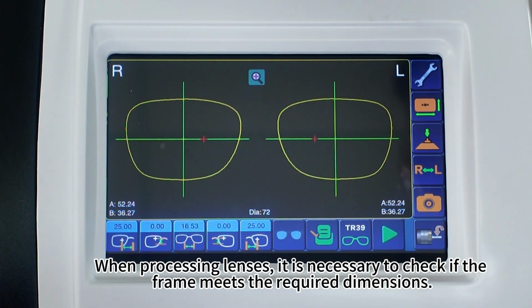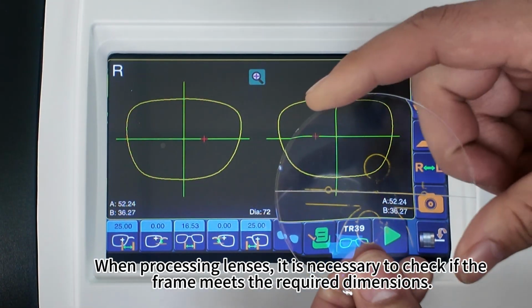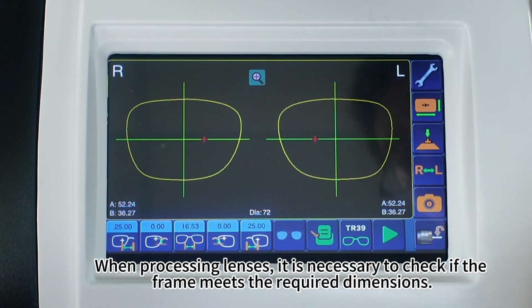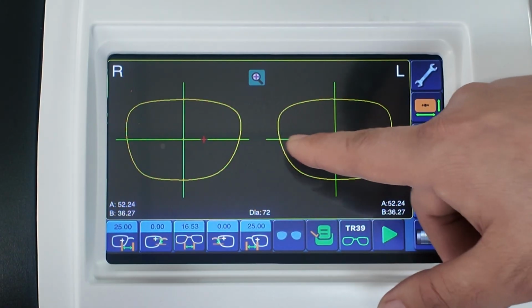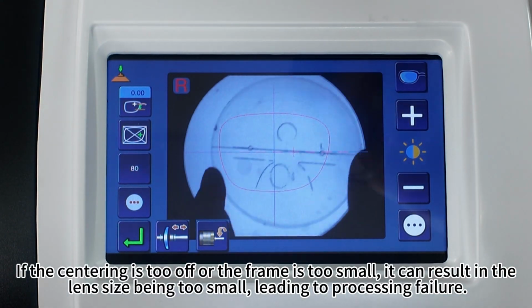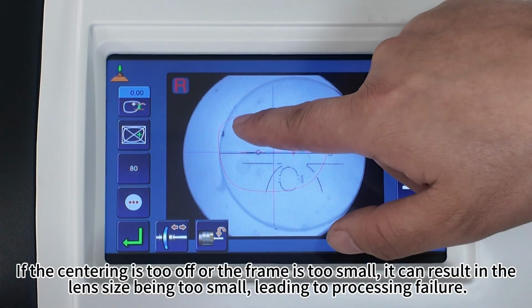Note 2. When processing lenses, it is necessary to check if the frame meets the required dimensions. If the centering is too off or the frame is too small, it can result in the lens size being too small, leading to processing failure.